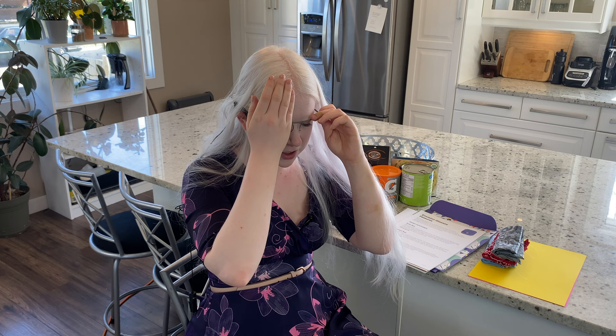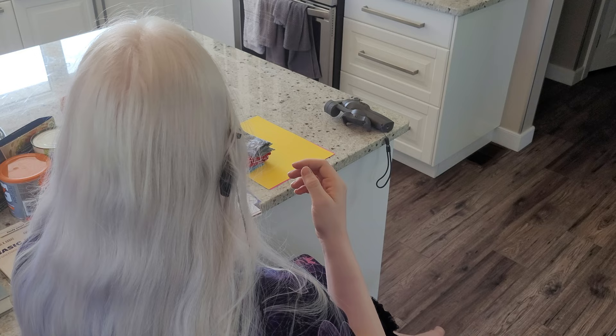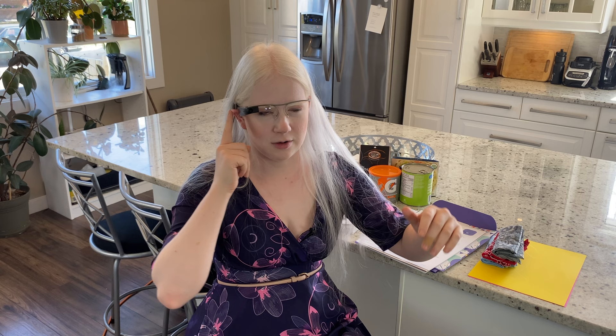Let's do detect light. Since there's no pitch, I'm covering the camera with my hand — so there's no light. As I slowly move my hand away, it'll get more light. This is the highest tone it seems to get, so it means there's lots of light. I personally would like if it didn't max out at what it sees as peak brightness, because where I'm sitting there are different levels of lighting — a window, studio lighting, dark patches — and it doesn't seem to identify those. It only seems to get to a certain point and then says that's the maximum light.